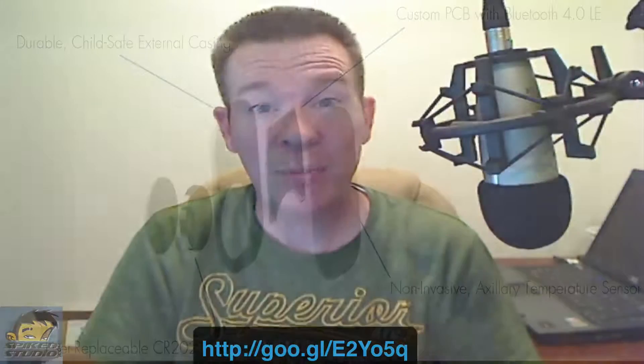The device is pretty small — that's the whole thing. What we have is a temperature gauge, not exactly a thermometer. There is a power button on the back, and then a lock mechanism for locked and unlocked. One thing to note: it took me a couple tries with the casing. It's a soft plastic, so using a screwdriver or coin kind of dented it a little bit.